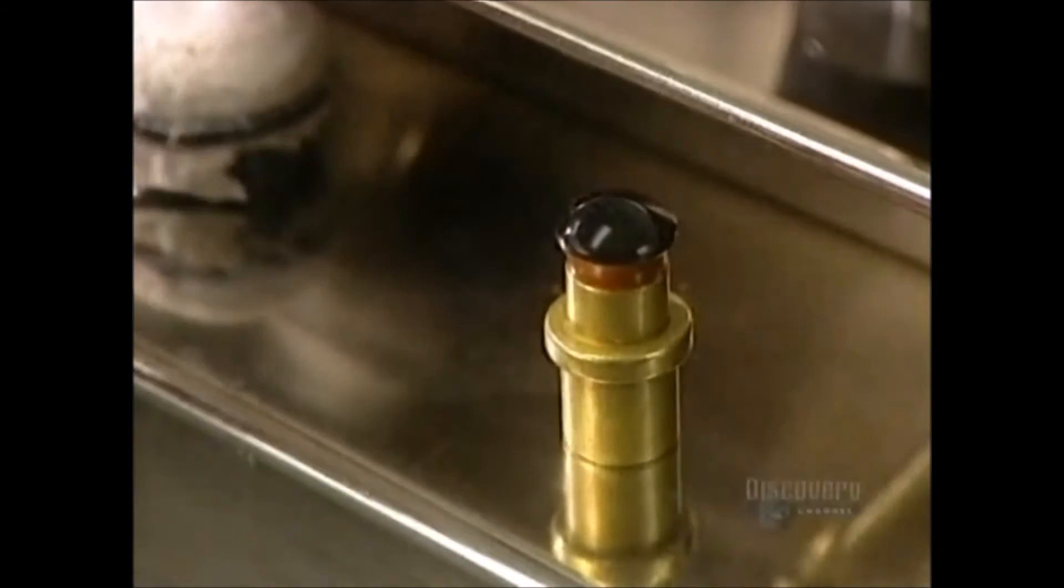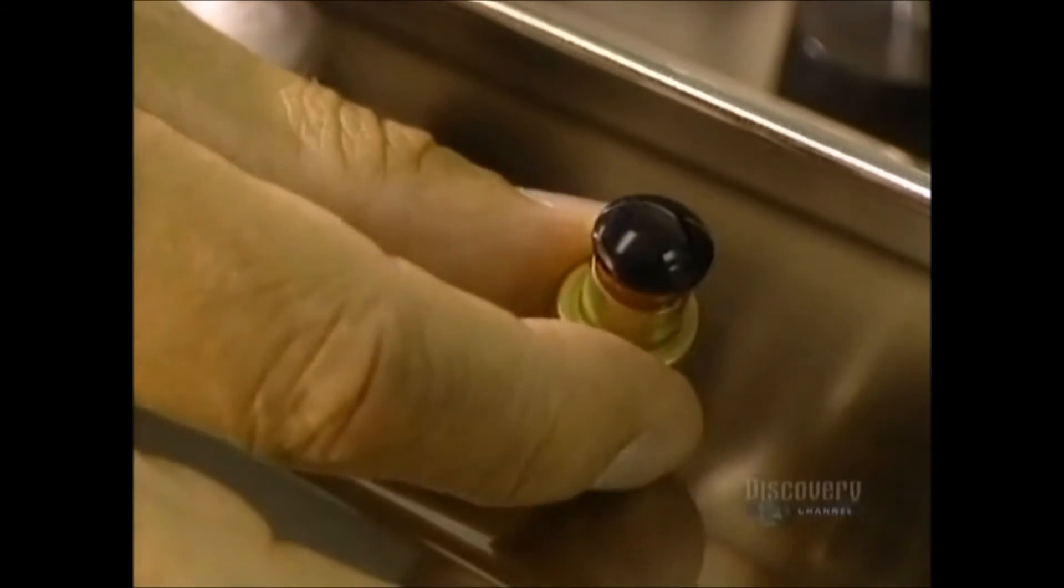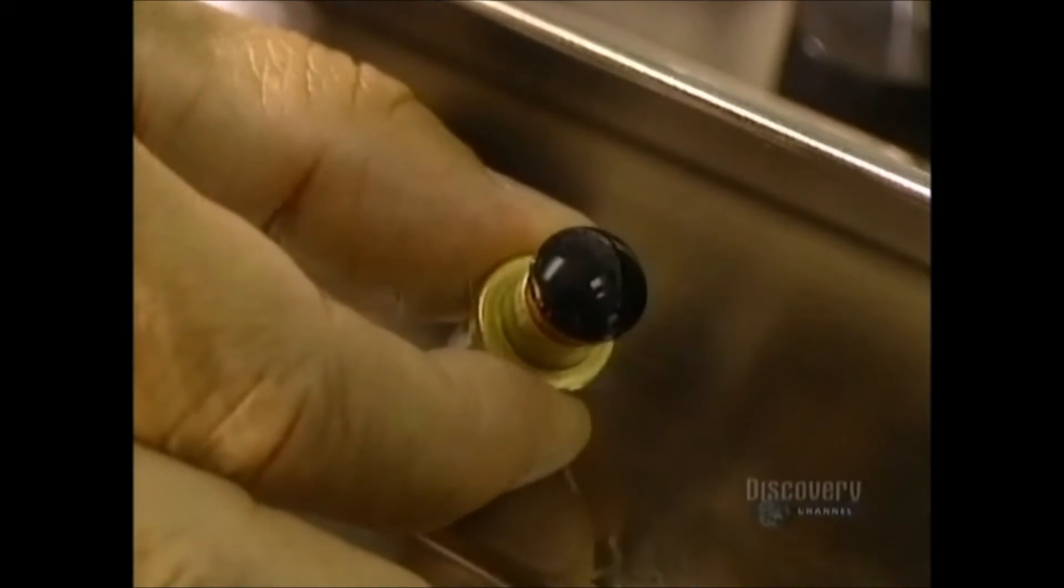With everything computerized, quality is incomparable. A technician then polishes the rims of the lens.